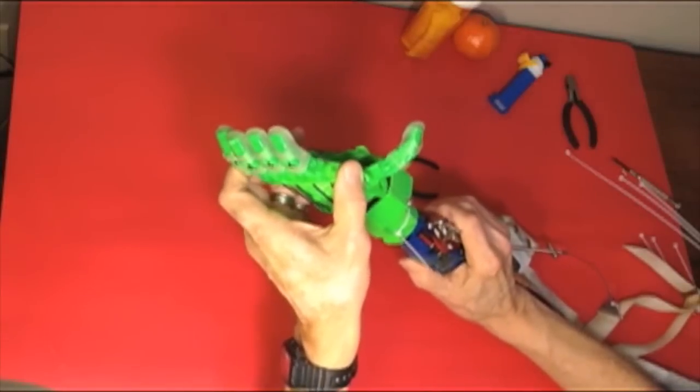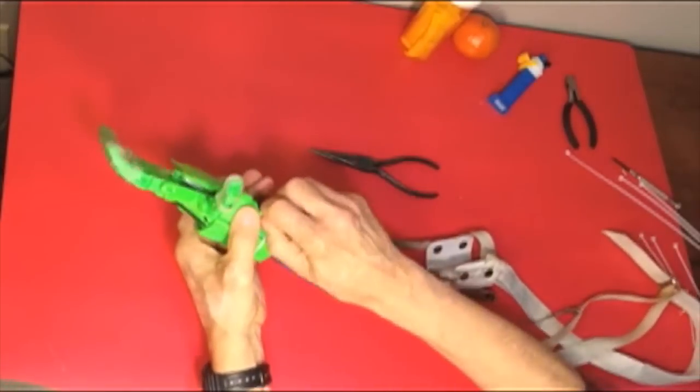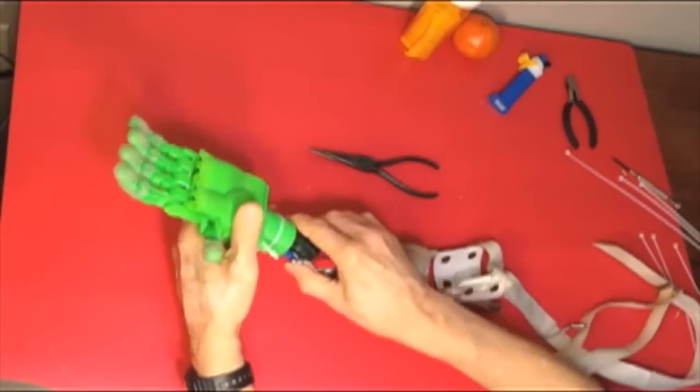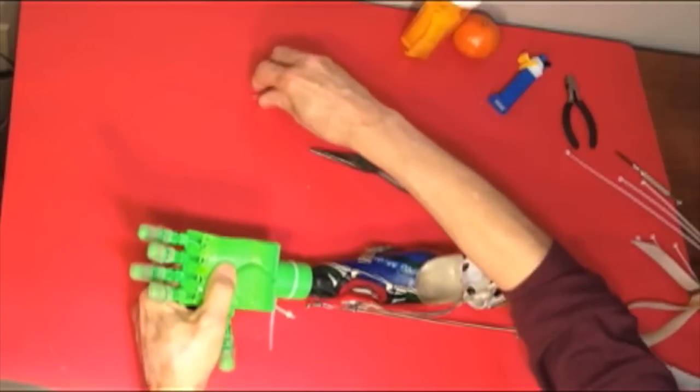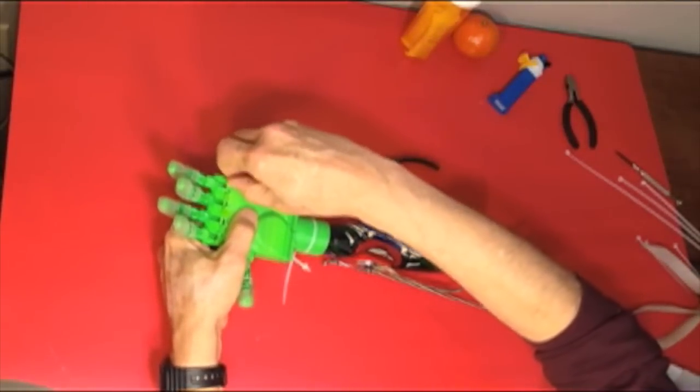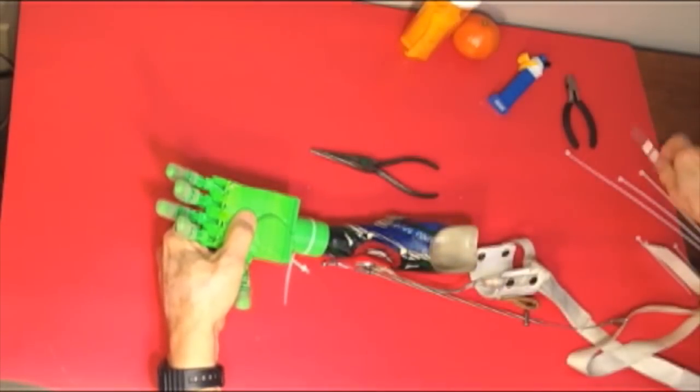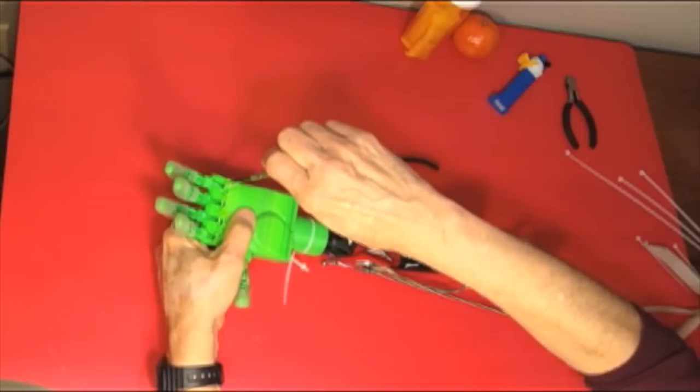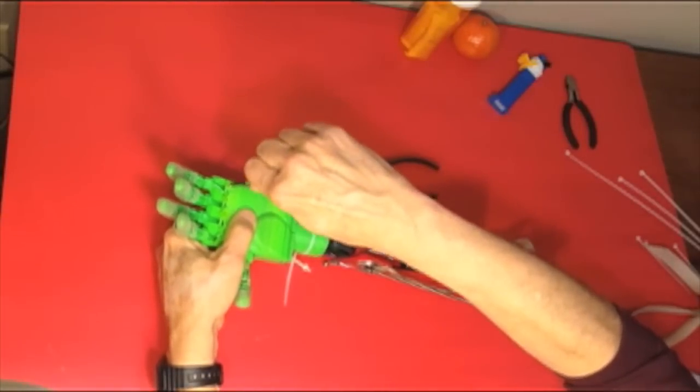The same cable on the harness attaches to the hand to actuate the fingers. Wilhay can use the prosthesis with the Raptor hand in much the same way that it is used with a gauntlet by a child with missing fingers.